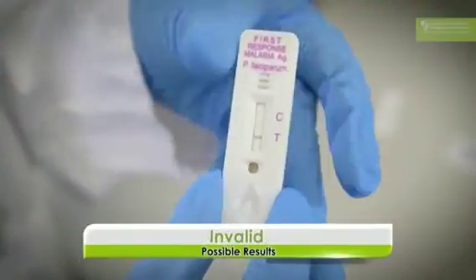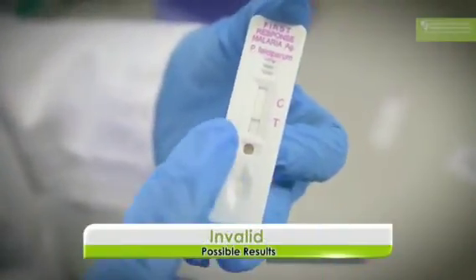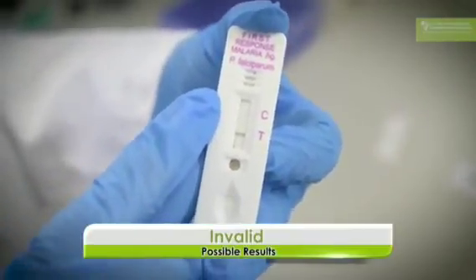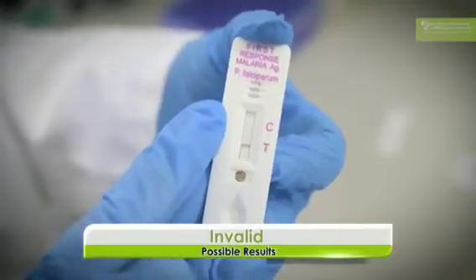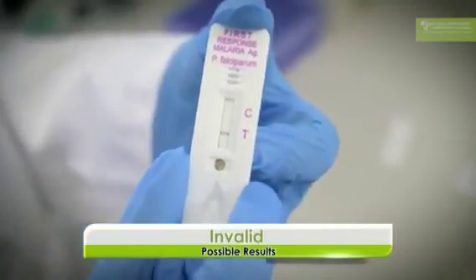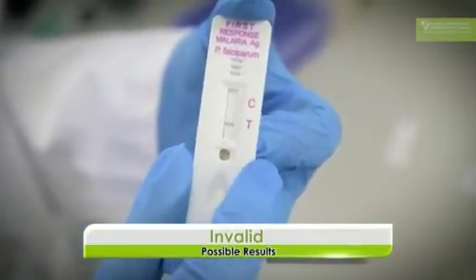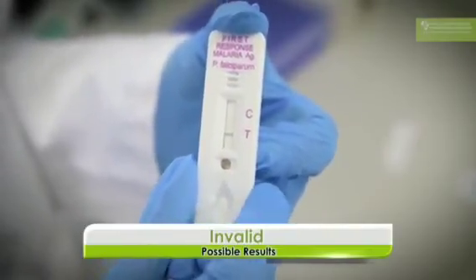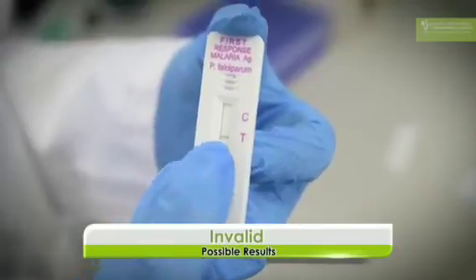So this test is going to be called an invalid test because while you get a test line that has come up, there is no control line, and you cannot call a result if you don't see a control line. So this is going to be an invalid test because only the test line has come up. So you have to repeat the test to ensure you get both a control and test line or only a control line.